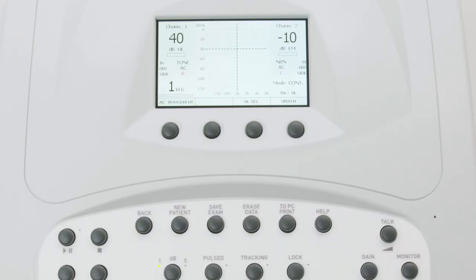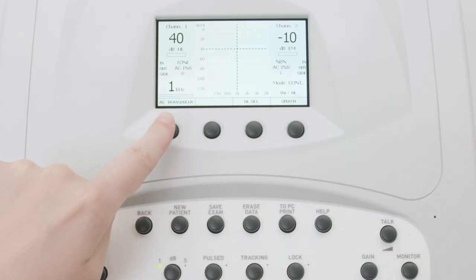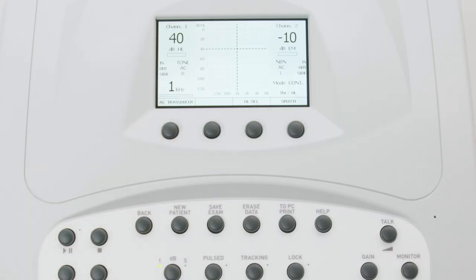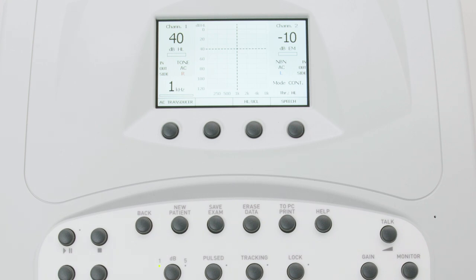You may directly change the transducer used for air conduction tests by pressing the AC transducer function button. This button is active only if one of the current outputs is air conduction and if more than one type of AC transducer has been calibrated.